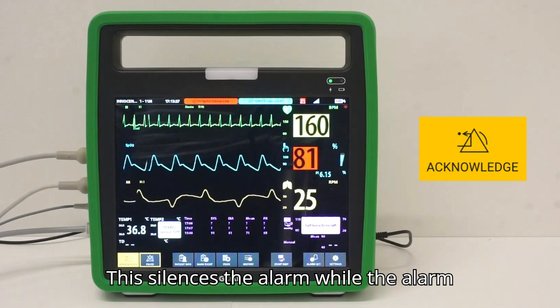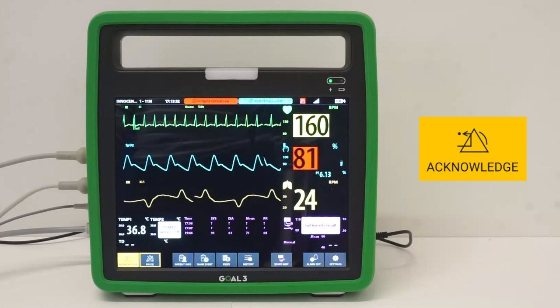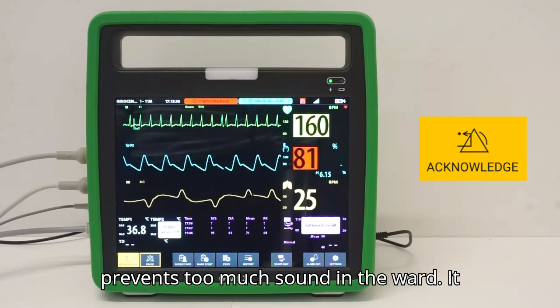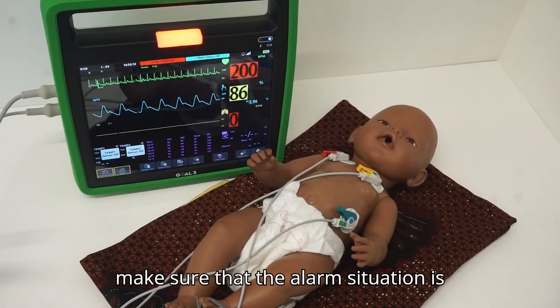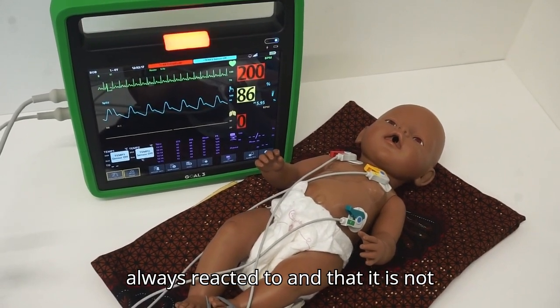This silences the alarm while the alarm condition of the patient stays the same. Muting the alarms is important as this prevents too much sound in the ward. It also helps you to hear new alarms. But make sure that the alarm situation is always reacted to and that it is not forgotten.